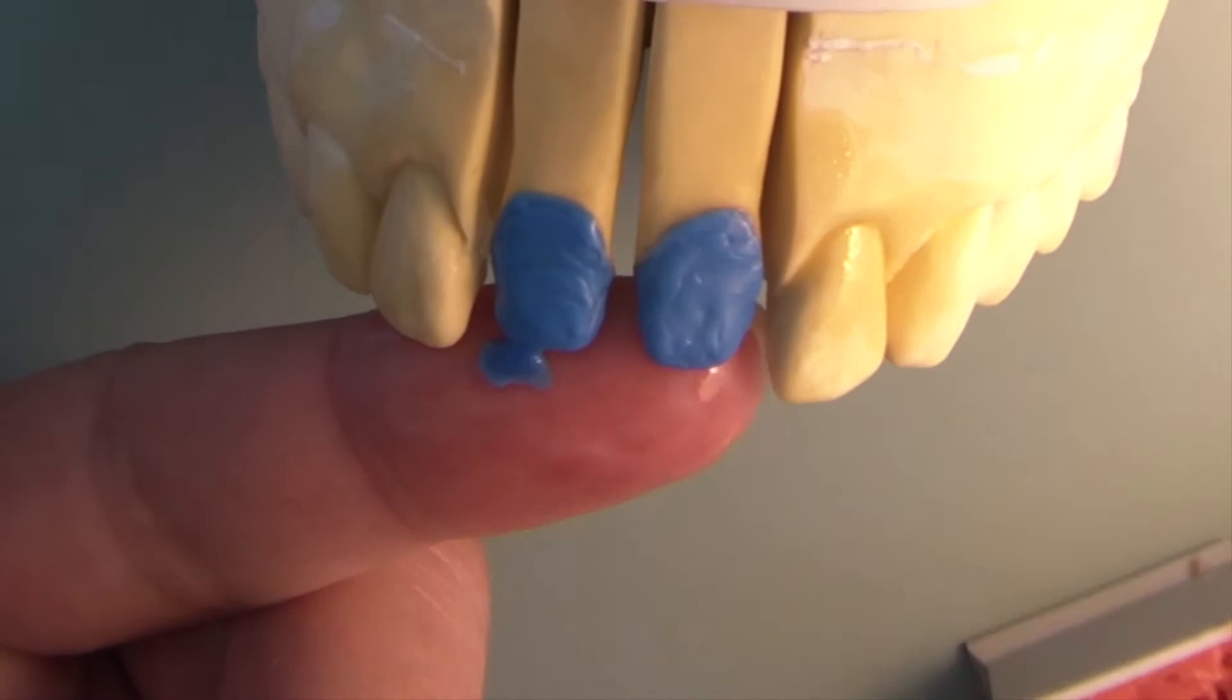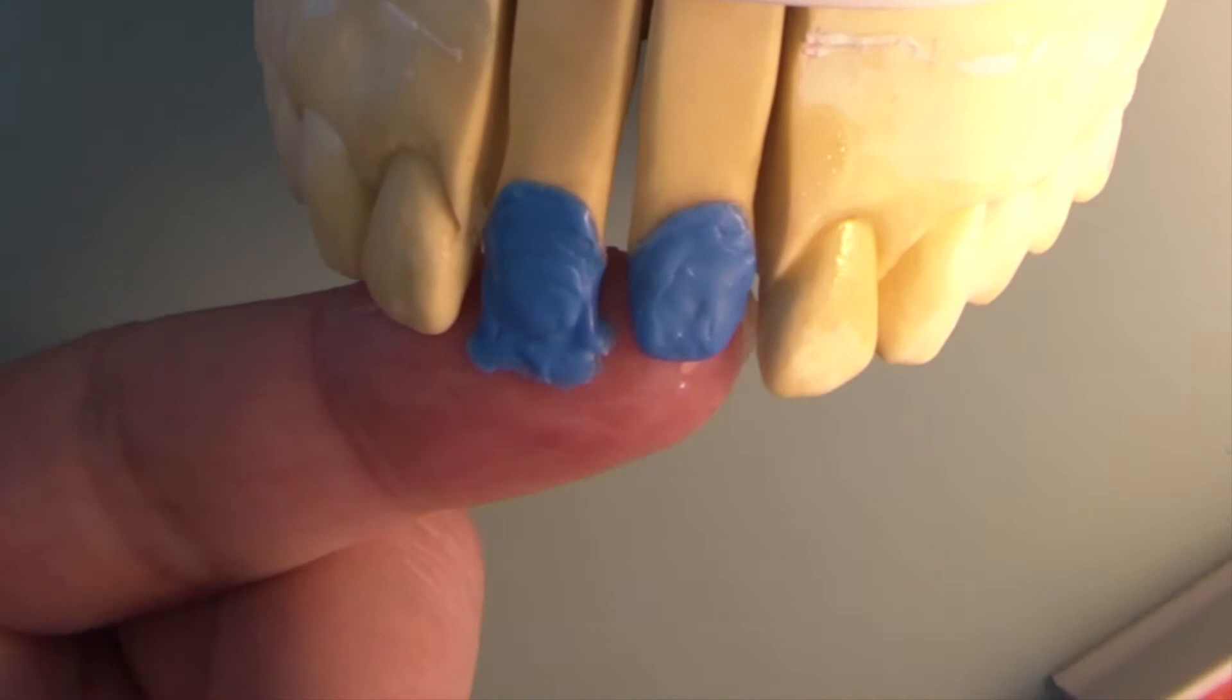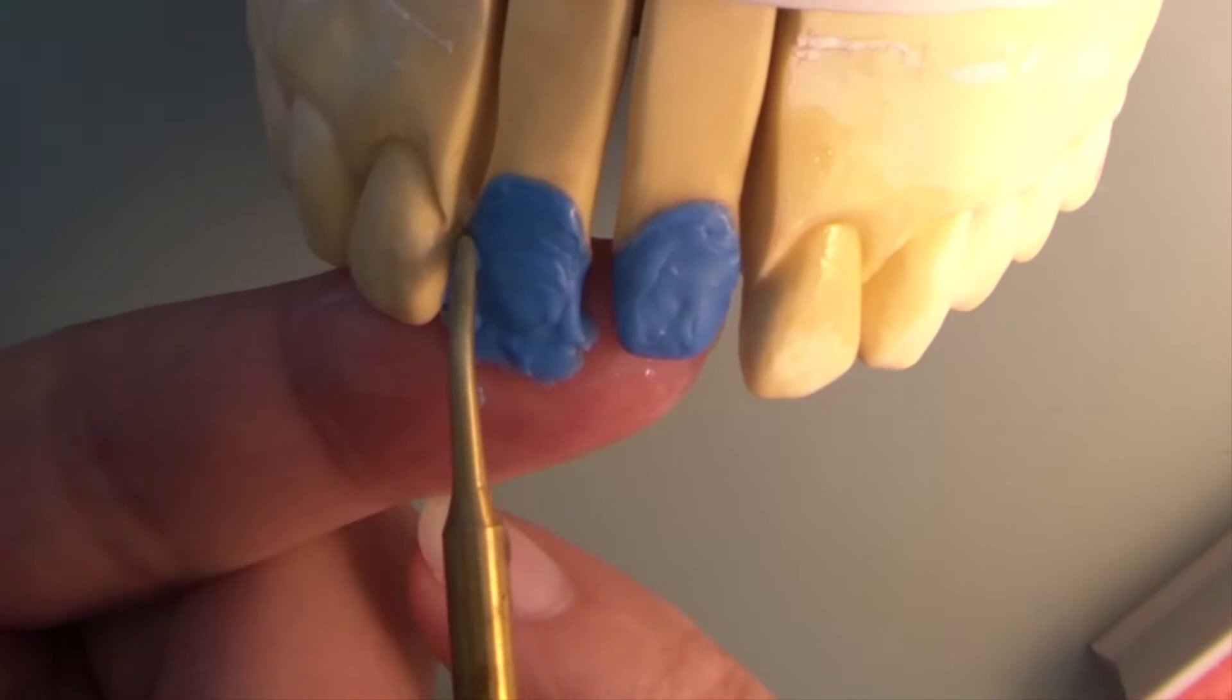Now I isolate my index finger and hold it palatinal to the cap. Don't worry it won't get too hot. Apply the desired length, even a little longer, thickly to the cap.